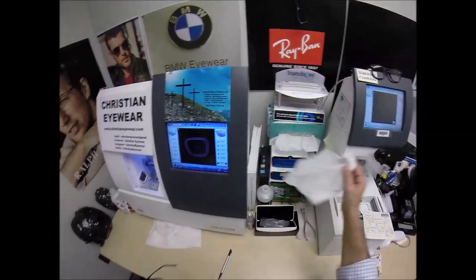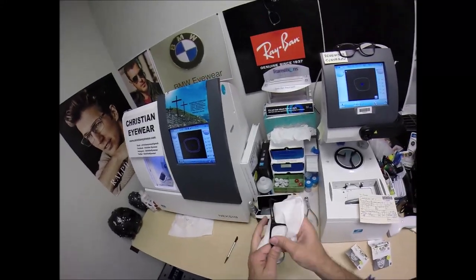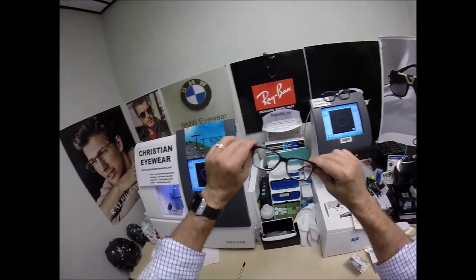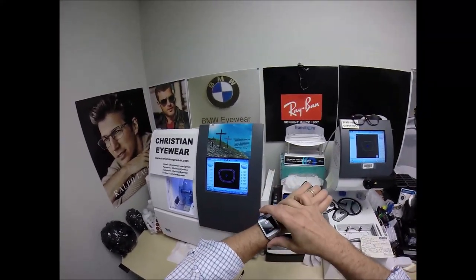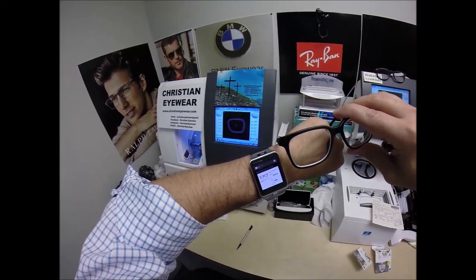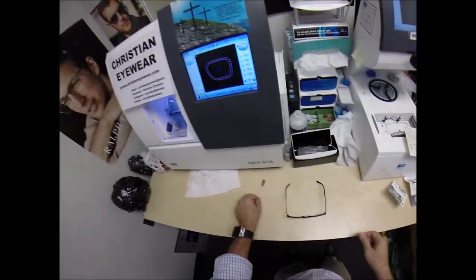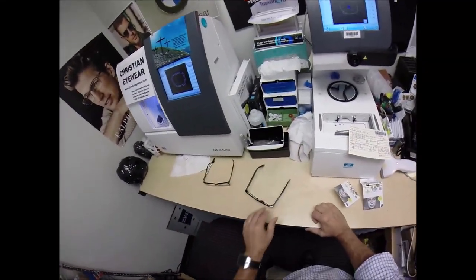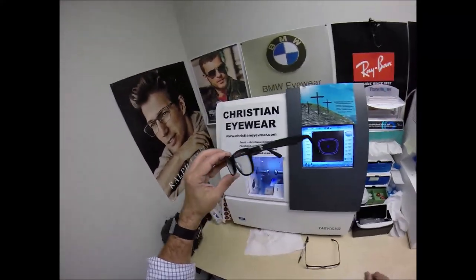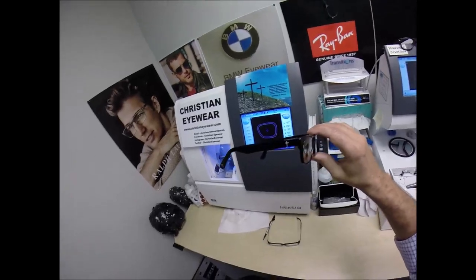The last thing I want to do as part of final inspection is, as I clean your lenses, mention that when you get these in the mail, Ricardo, there's a small chance they could fit too loose or too tight. However, there's an 80% chance that one side is going to sit higher than the other — that's because 80% of people have one ear that is higher than the other. And because of that statistic, 99% of all optical shops will do free adjustments if you ask them. I'm going to get them in standard alignment first — it's also known as a three-point stance. I set them down on the counter and press down — there is no wobble. Now when I say wobble, when I take off my Christian Eyewear frames and press down they wobble on the counter, but they sit level on me. And again, 99% of all optical shops will do free adjustments — it only takes about 30 seconds to a minute to adjust a pair of glasses perfectly.